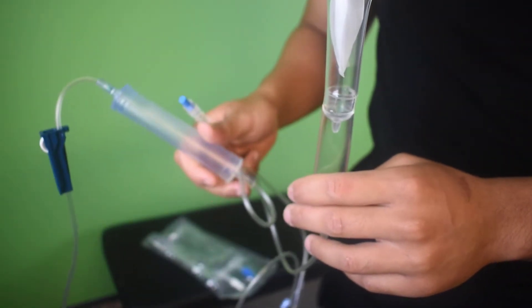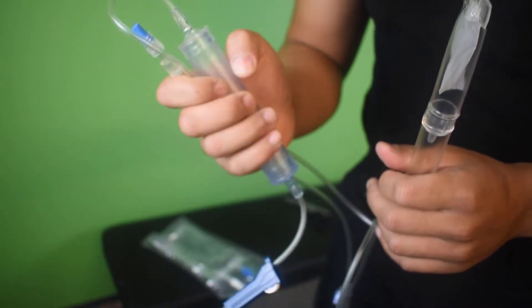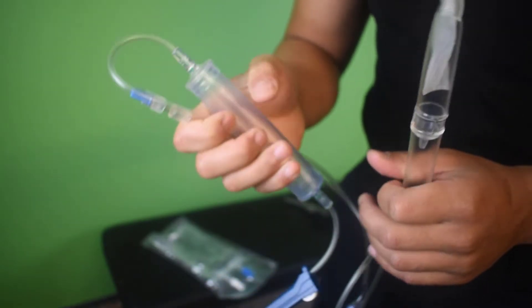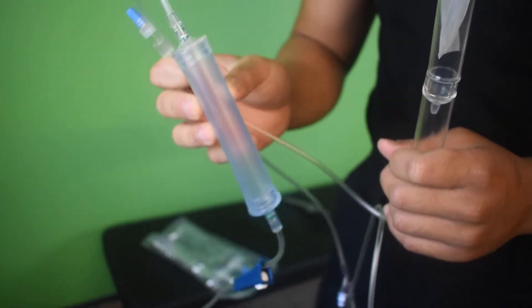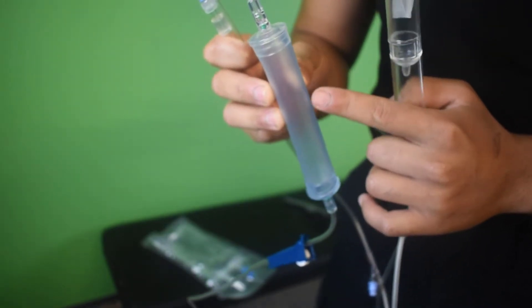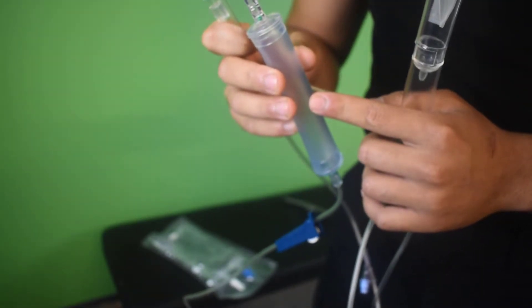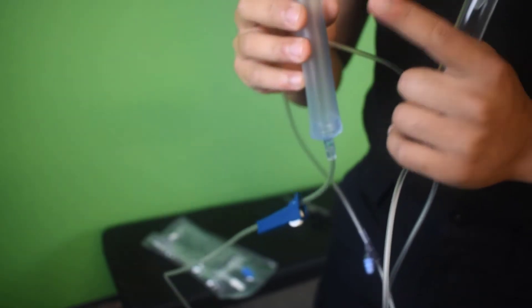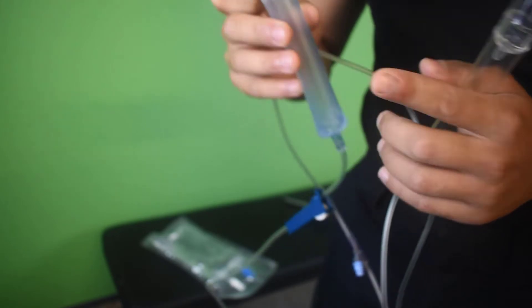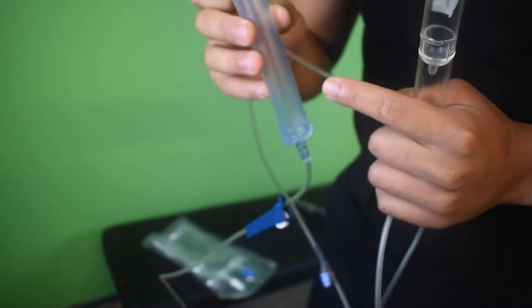The other thing from the drip chamber is your pump chamber. This is really good because if you need fluids in really fast, you can squeeze this multiple times and you can keep squeezing to get fluid into the patient really quickly. And we'll be talking about this soon because this is really important because this is the reason why we get so many bubbles when we set up priming. I'm going to show you how to avoid this at all, and I do it with almost 100% success rate. Never have bubbles in mine, so it's important that we show this the correct way.